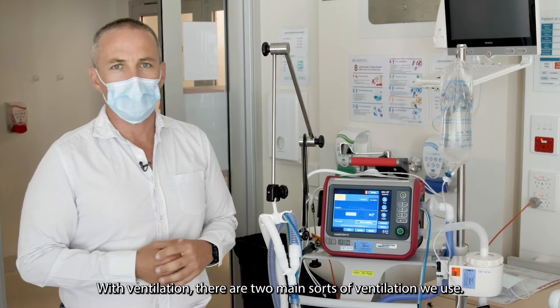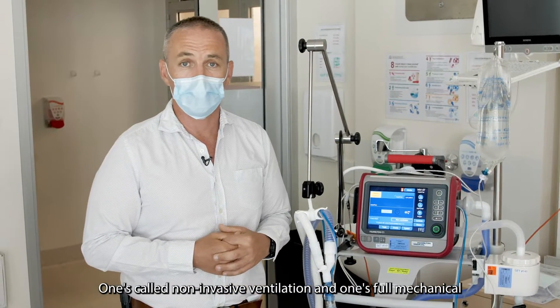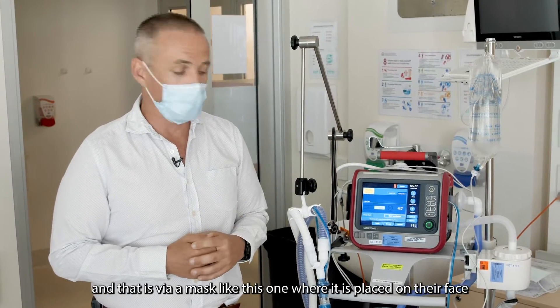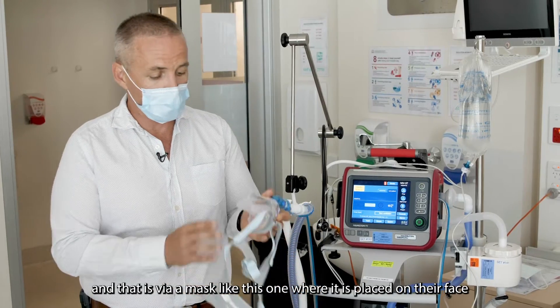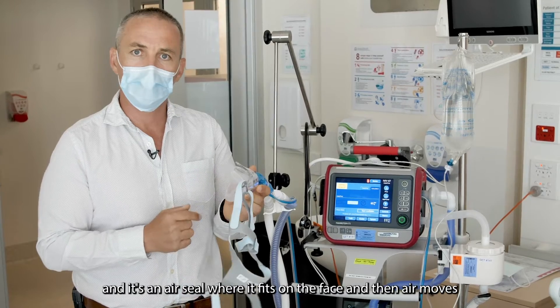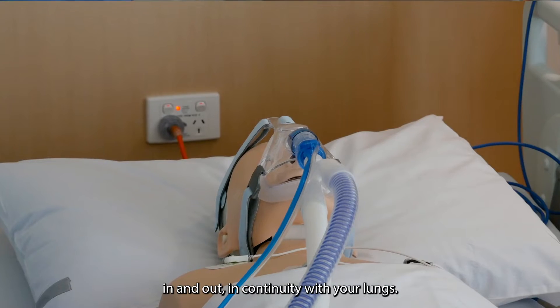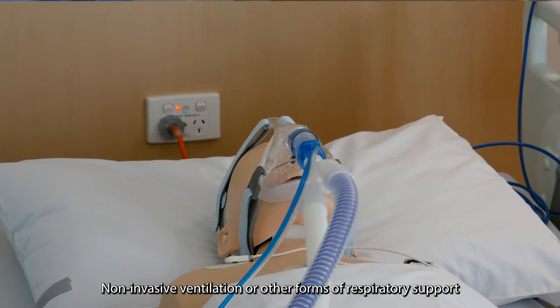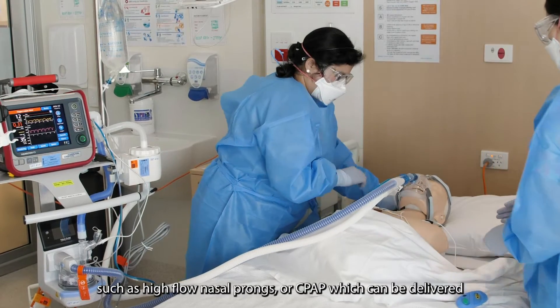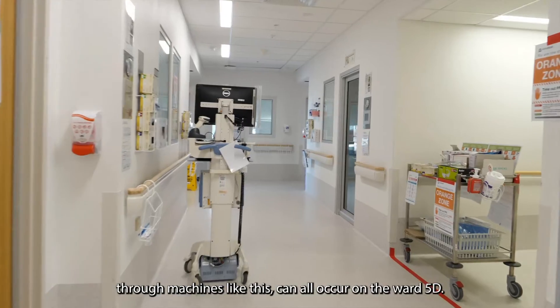With ventilation, there are two main sorts of ventilation that we use. One's called non-invasive ventilation and one's mechanical ventilation. Non-invasive ventilation can be used in an awake patient via a mask like this one, where it is placed on their face with an air seal, and air moves in and out in continuity with your lungs. Non-invasive ventilation and other forms of respiratory support such as high flow nasal prongs or CPAP, which can be delivered through machines like this, can all occur on Ward 5D.